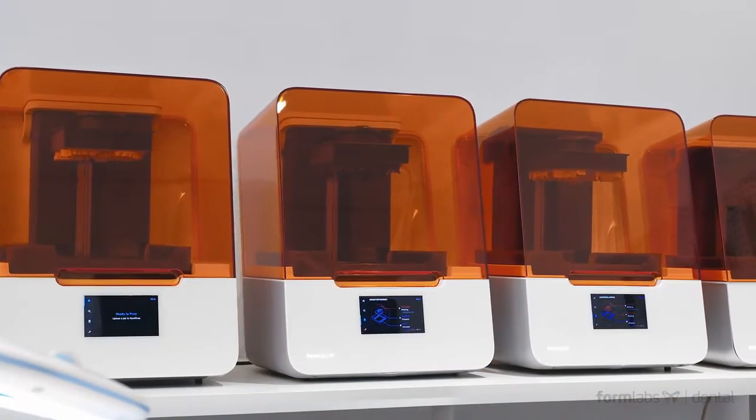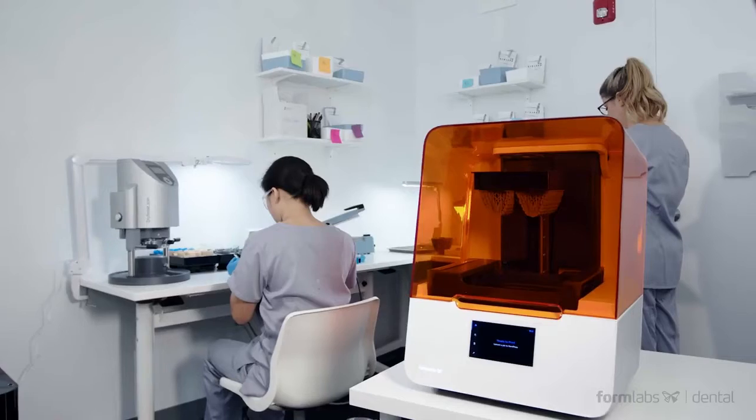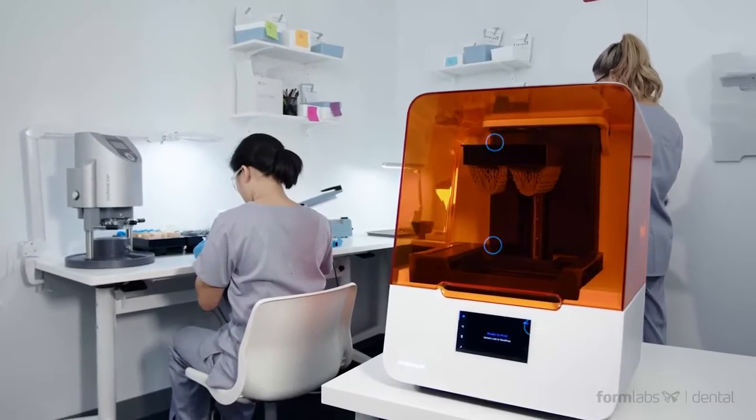So we optimized the Form 3B to run 24-7, equipping it with a multitude of smart sensors, remote printing capabilities, and user-replaceable components.